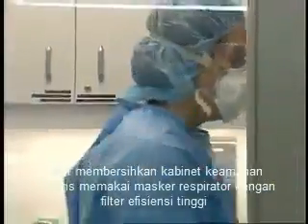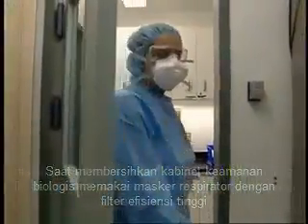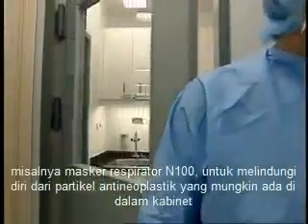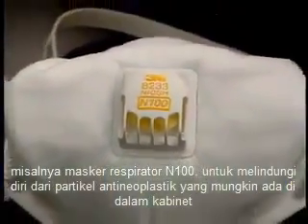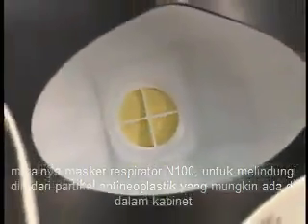When cleaning the biological safety cabinet, wear a respirator mask with a high-efficiency filter, an N100 respirator mask, for example, to protect yourself from antineoplastic particles that might be present in the cabinet.